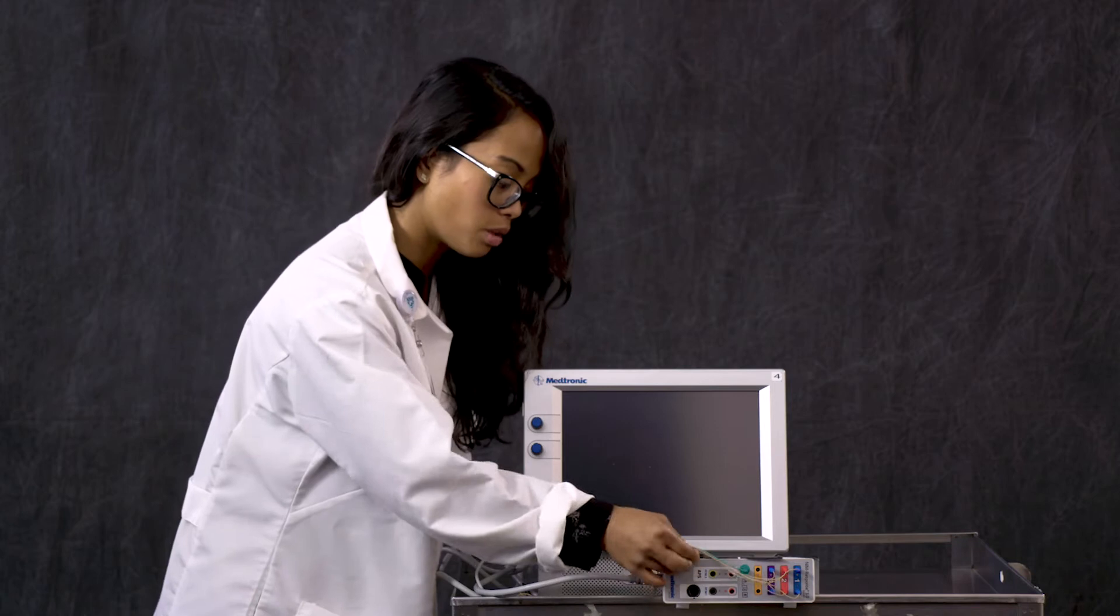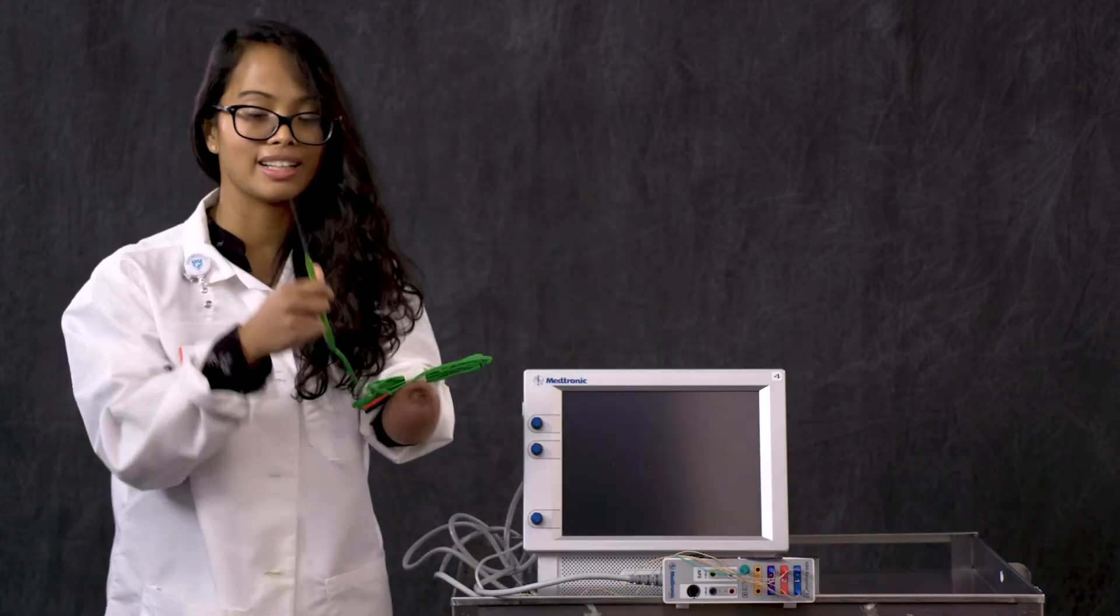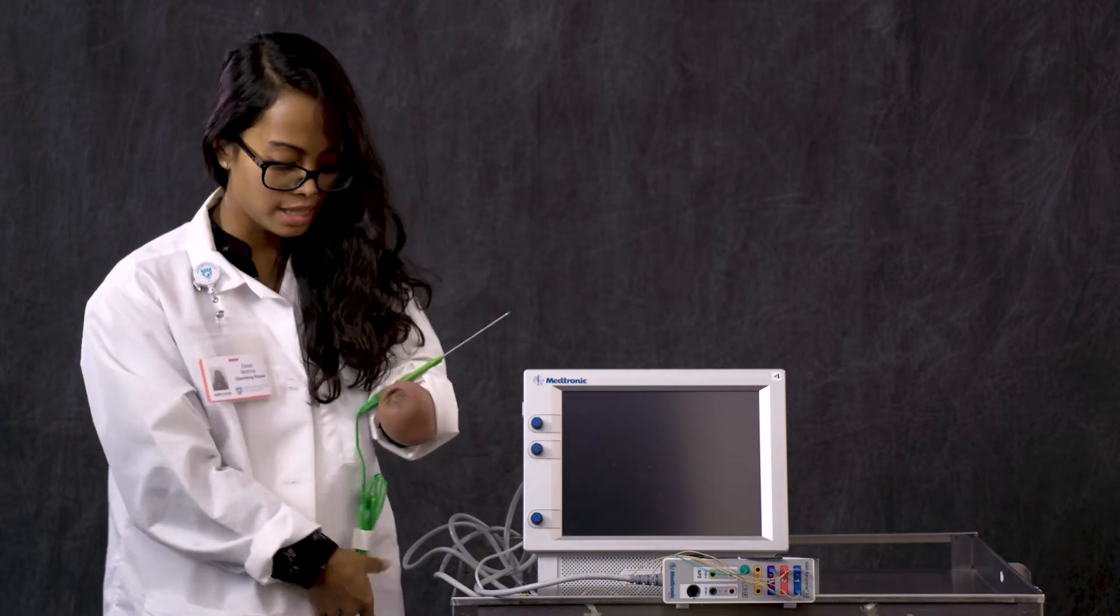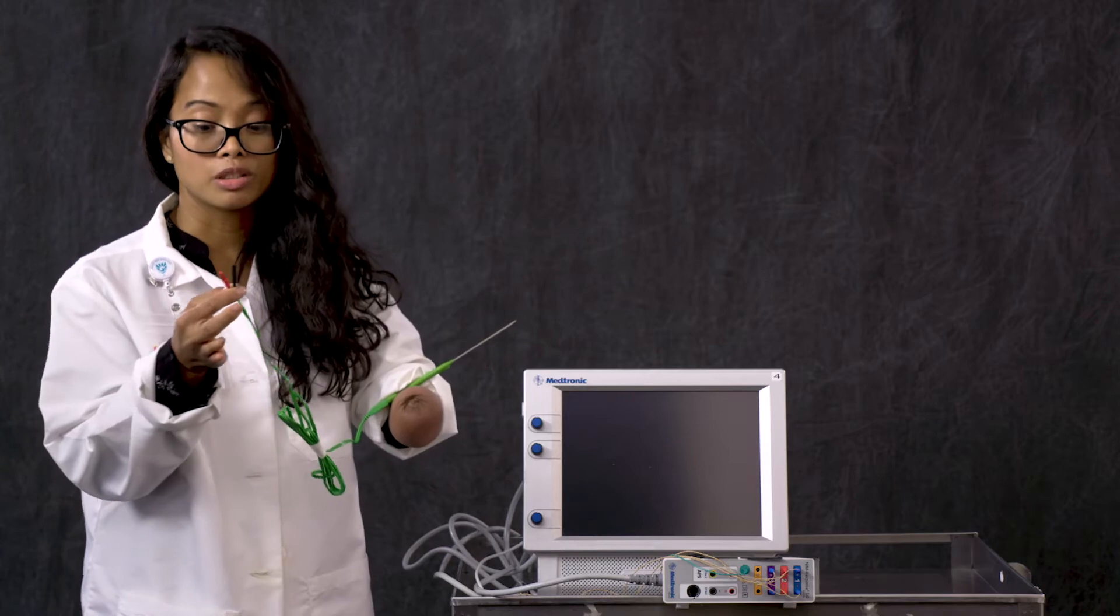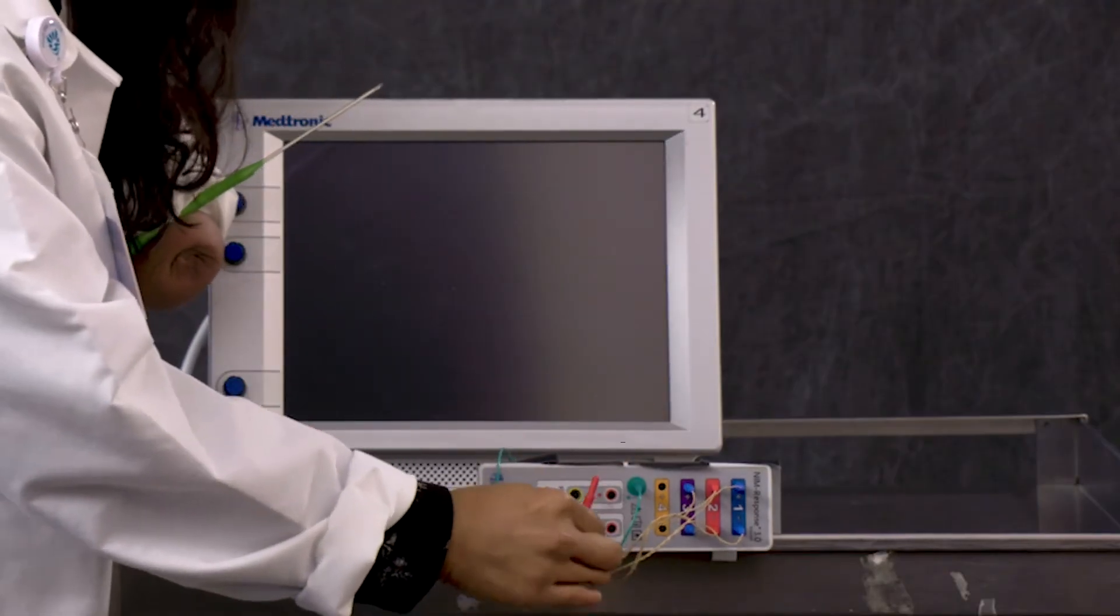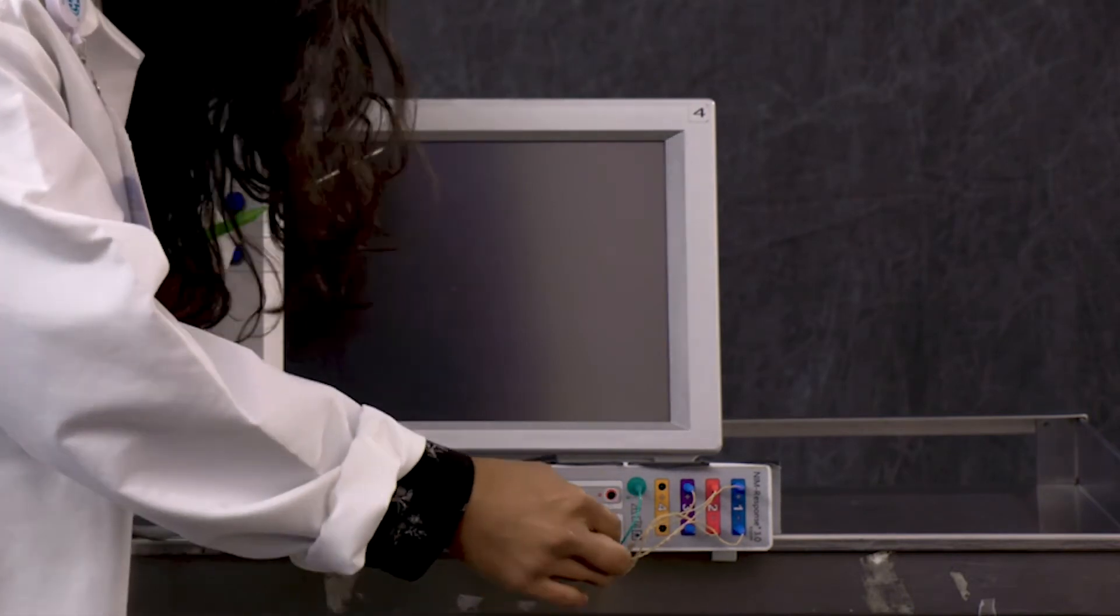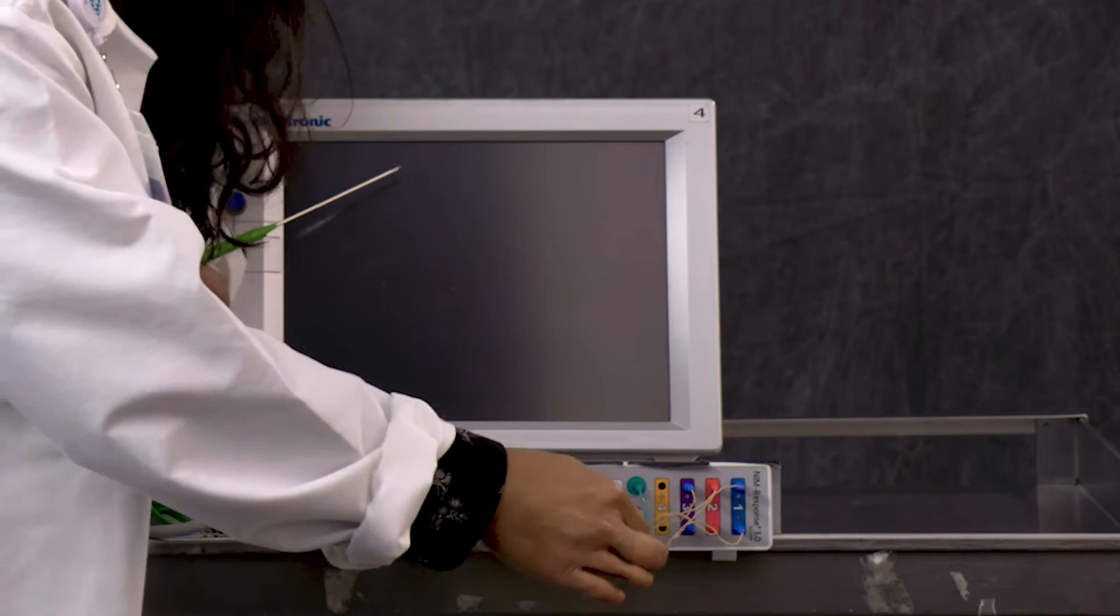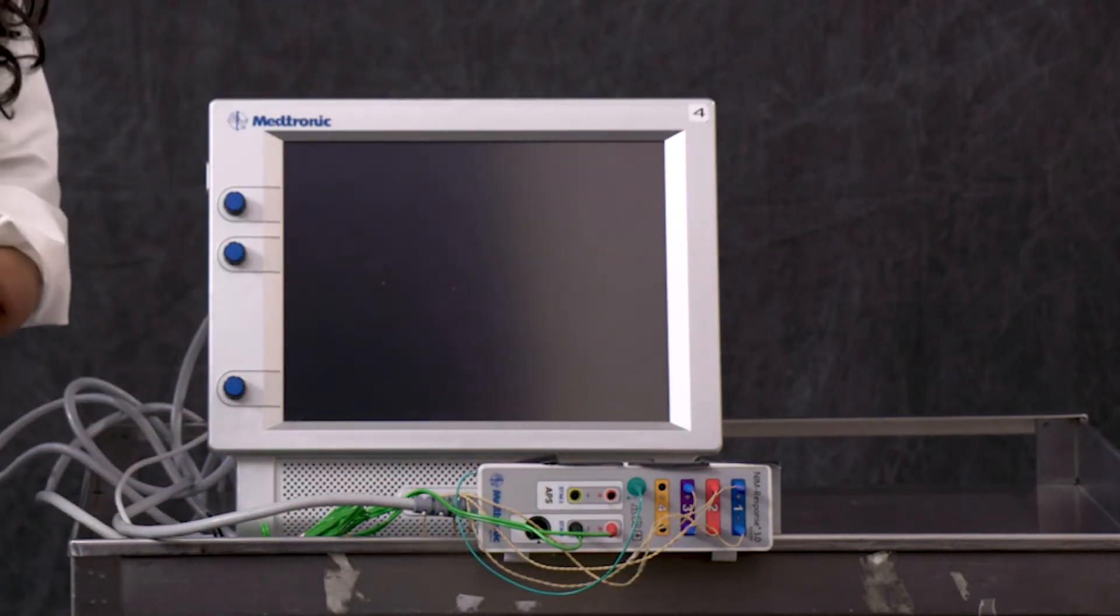The last thing we're putting in is our side-by-side bipolar stimulator probe. The reason you don't need the white electrode is because this is a bipolar probe. You're going to take the two ends and put black and black where the stimulator or stim one is, and the return part goes above it. And there you have your setup.